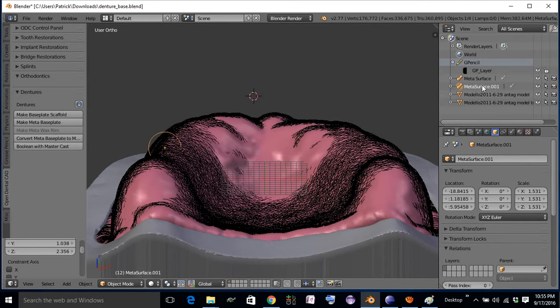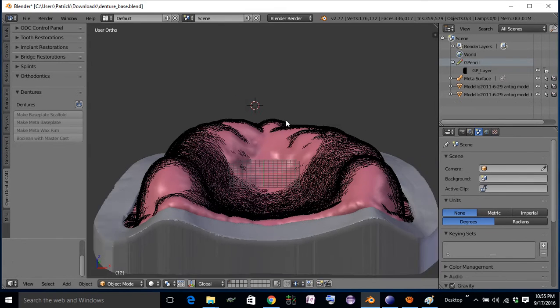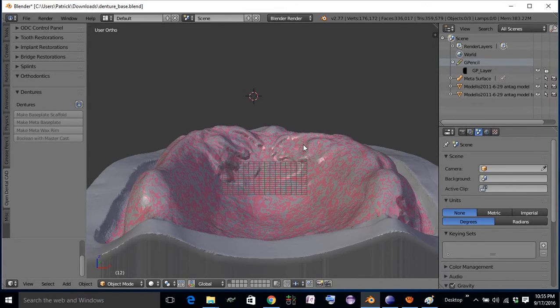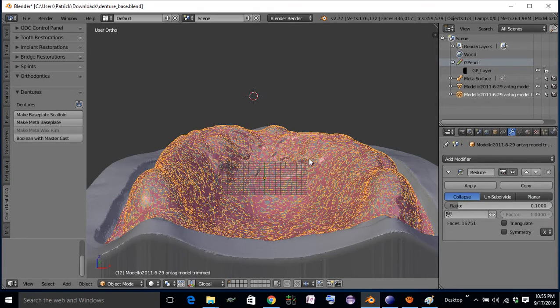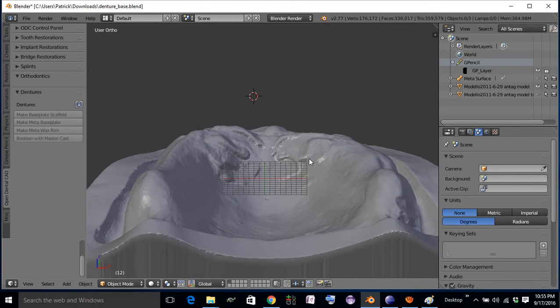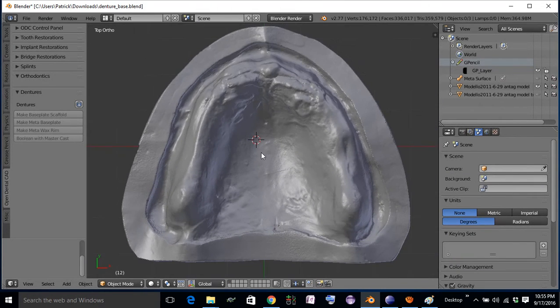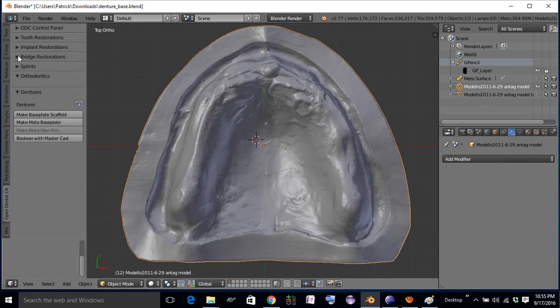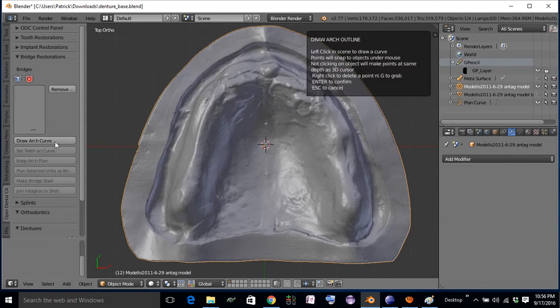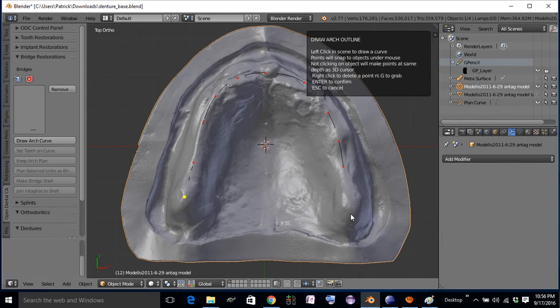Let's just ignore that because it's not really that important. I'm going to hide this and hide our base plate scaffolding. Come from above and use our arch curve option, and draw right at the middle of the crest of the ridge.